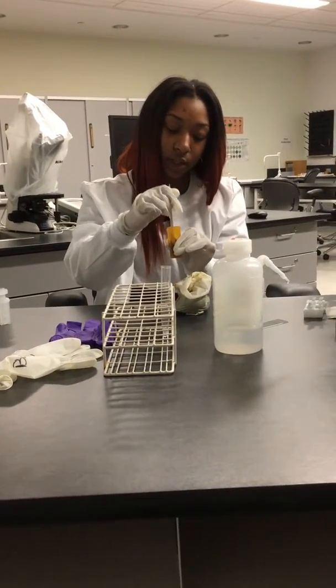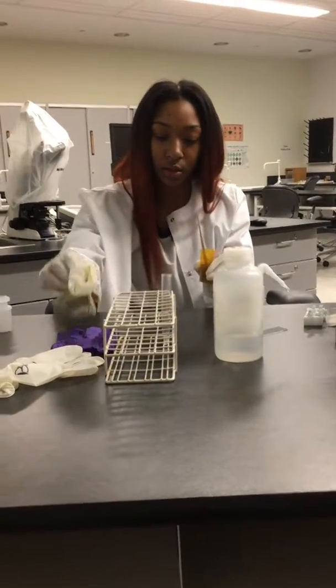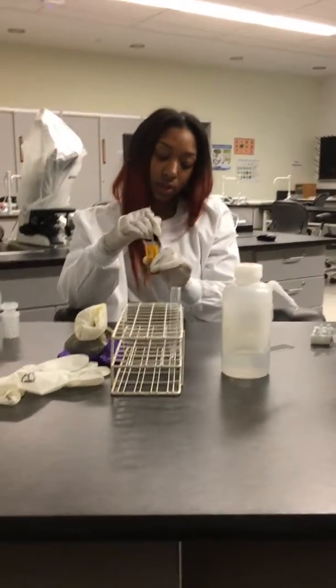And while you're stirring, you want to try to make sure that you get it as mixed as possible.